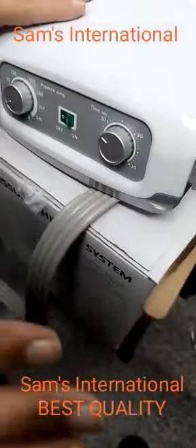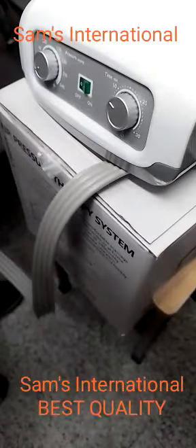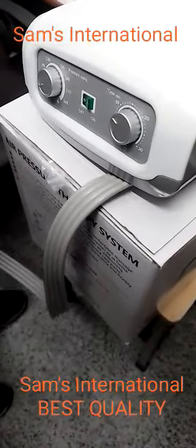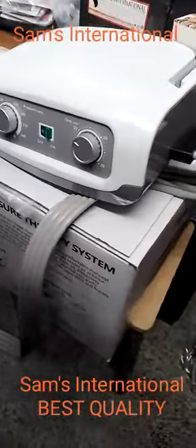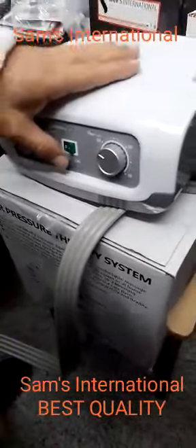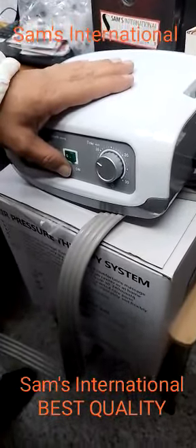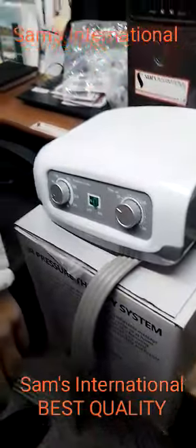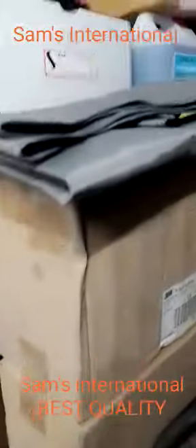This is a compression and lymphedema therapy machine, very useful for patients who have swelling limbs or abdominal swelling, wherein fluid is getting collected, so that blood circulation improves and fluid is not getting collected at one area of the body. This machine helps — it is very useful for cancer patients. Post breast removal ladies do tend to have swelling in the arms, so for that the arm attachment is there. Then if somebody is having GI surgery, for them the abdominal pad is there.